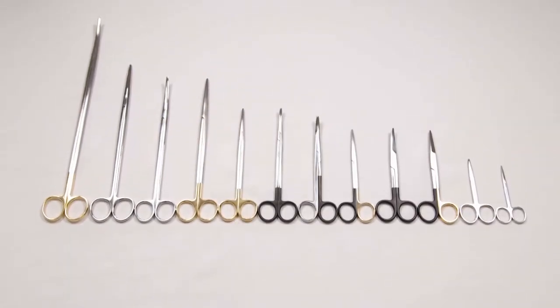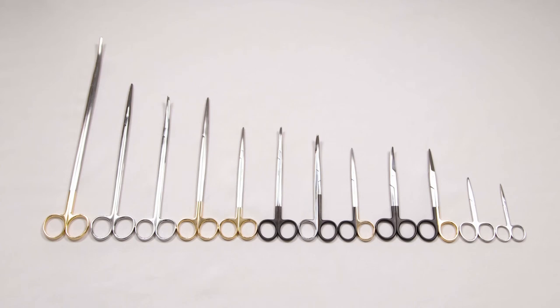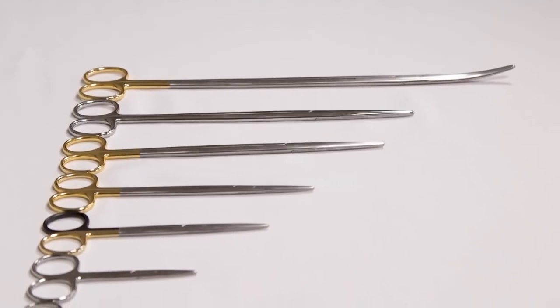Both Metzenbaums and Mayos are available in a variety of different lengths and with either curved or straight blades.